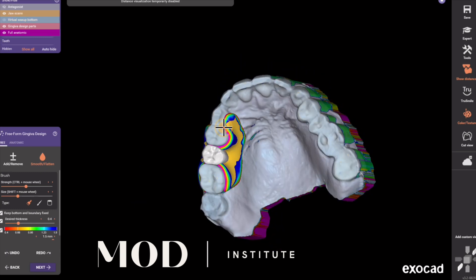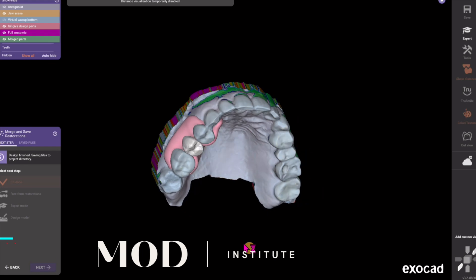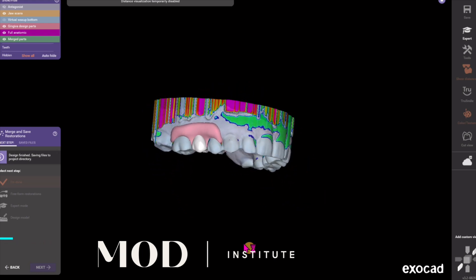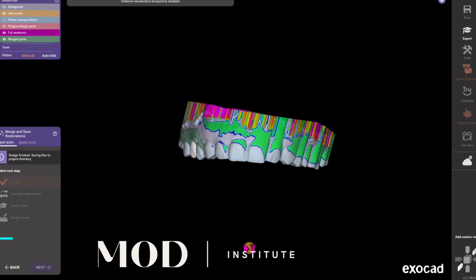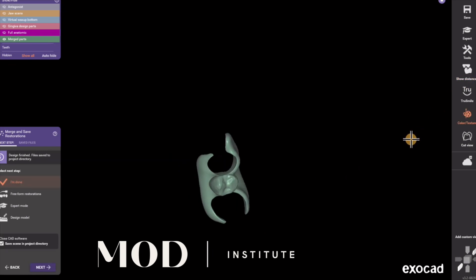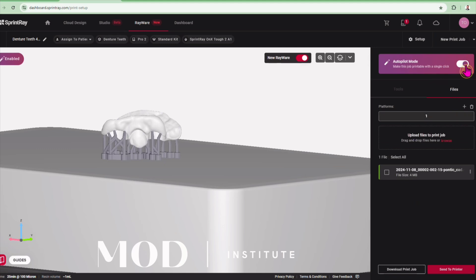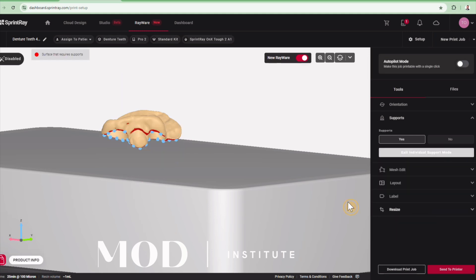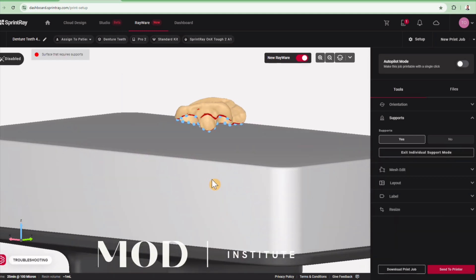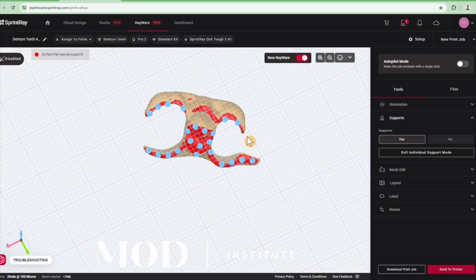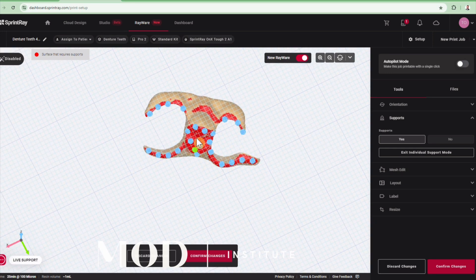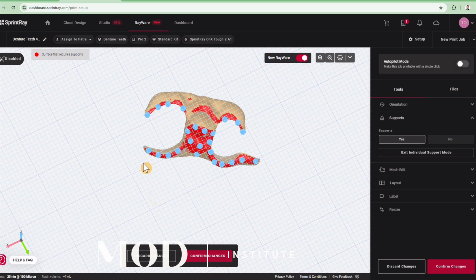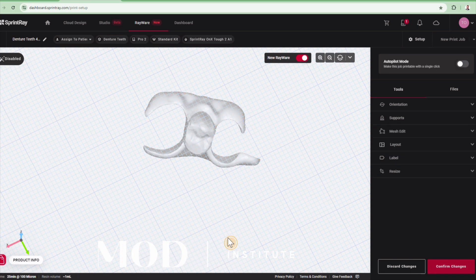That's about all there is to it for a monolithic partial denture. When you hit next, it's going to combine all of those into one solid file called your merged part. Turn off the colors so you can see it — that is what you print. To print it, nest it occlusal surface down, go to add/remove individual supports, and make sure when you rotate and look underneath that you have a support on the very tip of each clasp. If you have that, it should be a well-fitting clasp. If you forget a support tip on the clasp tip, it will be deformed and you'll have inappropriate retention — too light or too heavy.